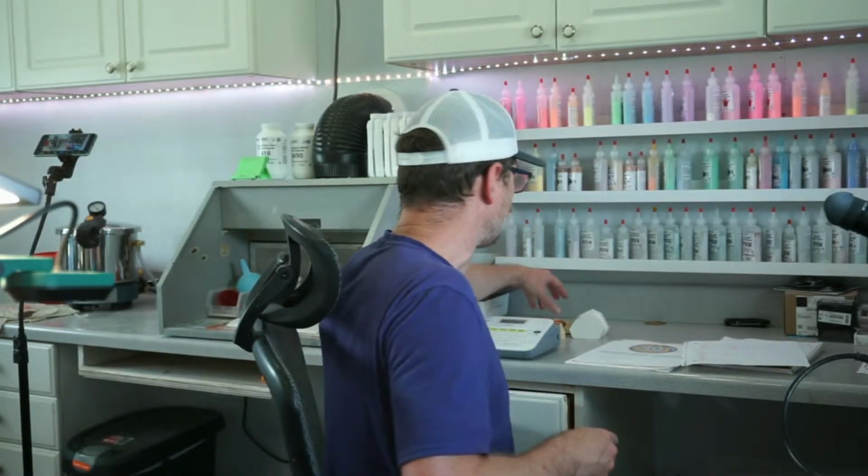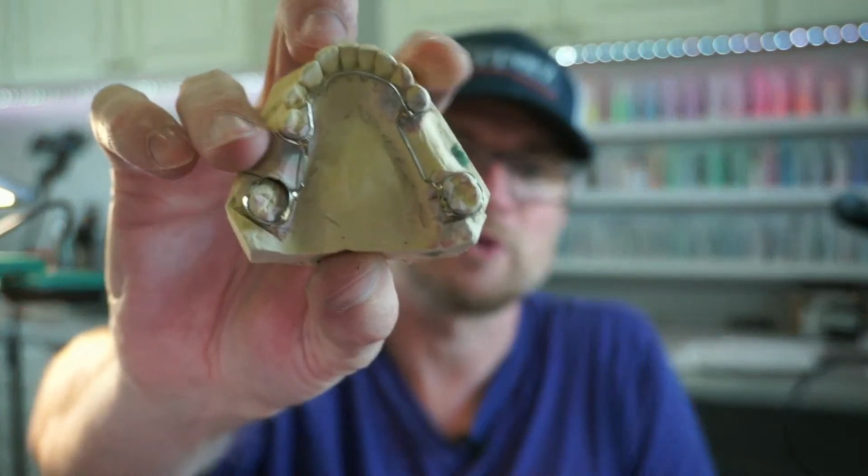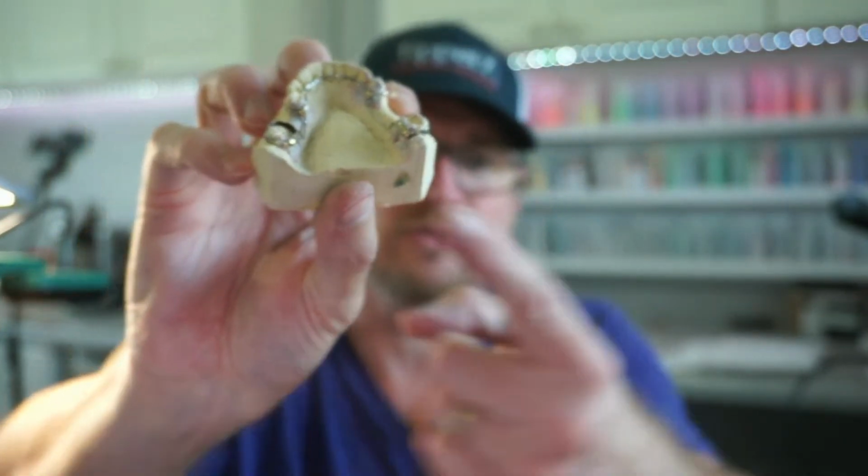That is an actual exam model, I think. They may change them a little bit from year to year. I'm not sure. I know they changed the questions a little bit from year to year. But I think it's still, just as far as an overview, you still have to do that upper, a lower with a screw, a sagittal screw in it, and a lingual arch with spurs. And actually, you have to do a second model of this with the bands by themselves, so they can judge you on your bands before you solder and ruin the model. But that's it. So it's in 3 parts.